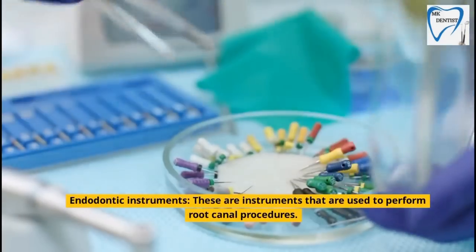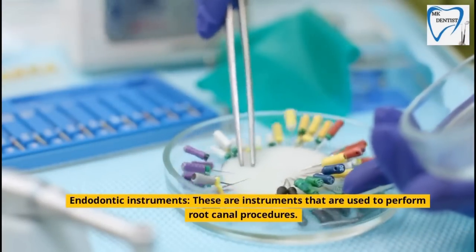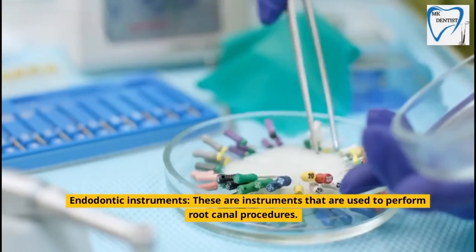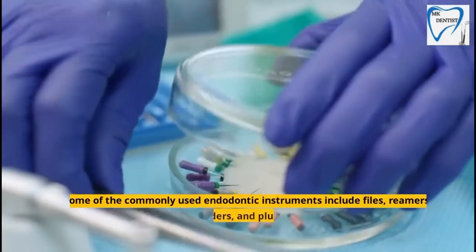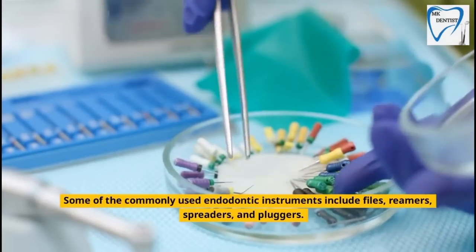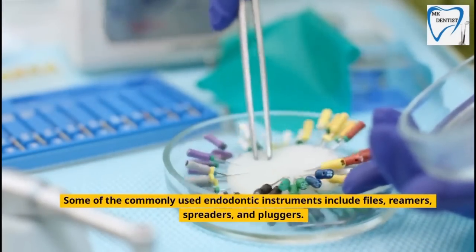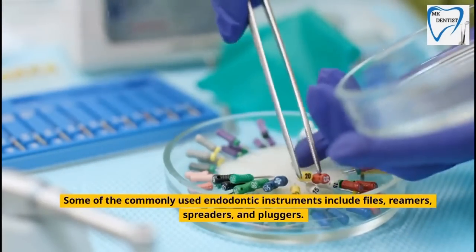Endodontic instruments are instruments that are used to perform root canal procedures. Some of the commonly used endodontic instruments include files, reamers, spreaders, and pluggers.